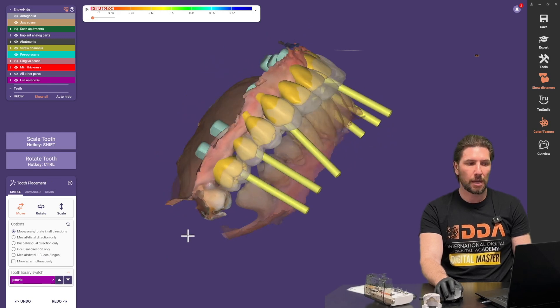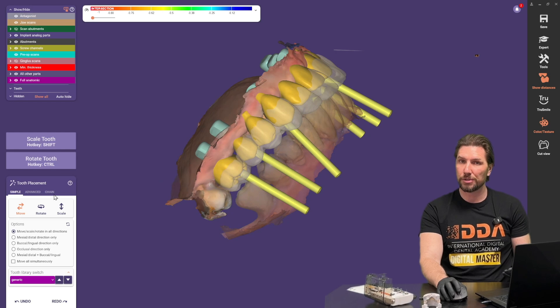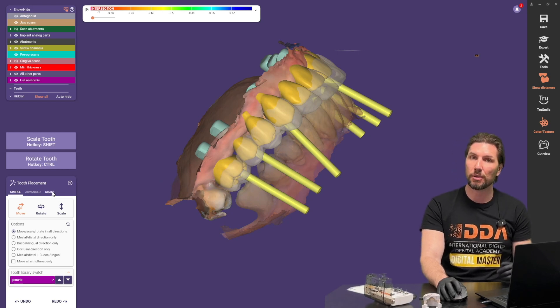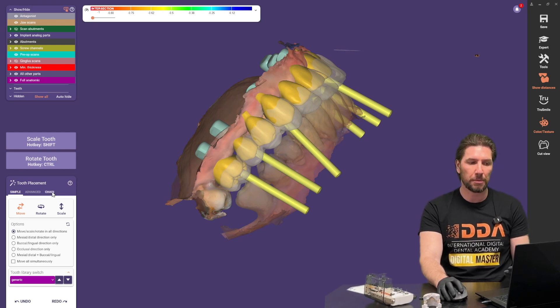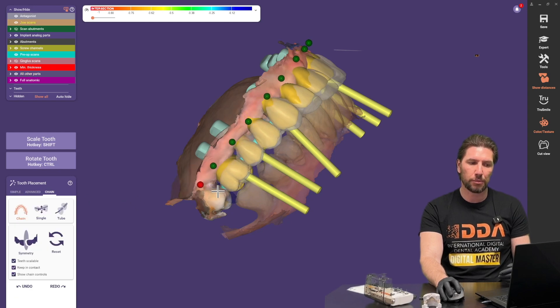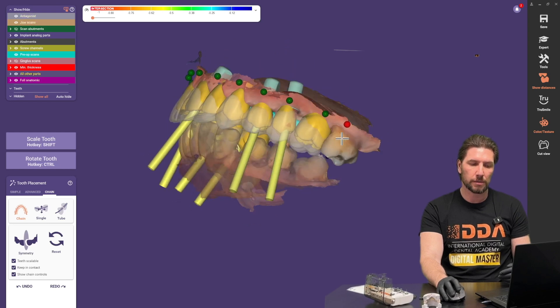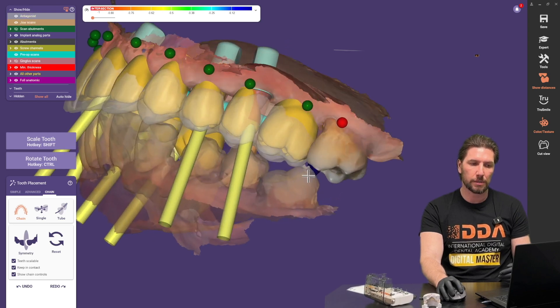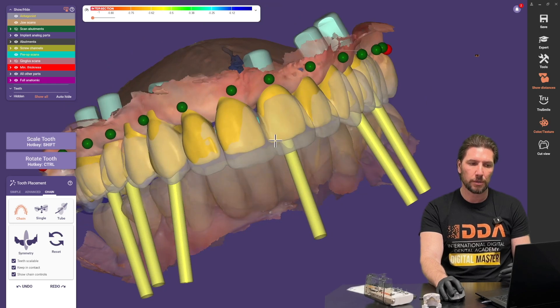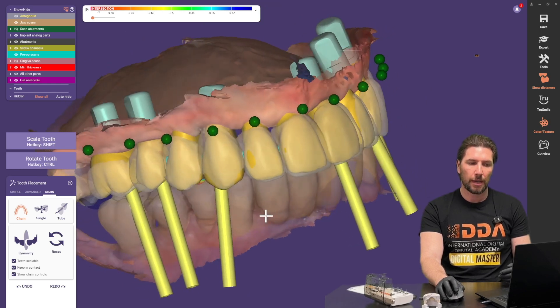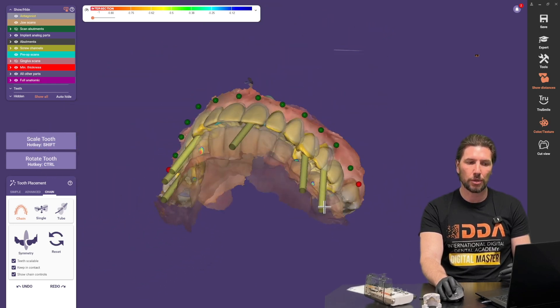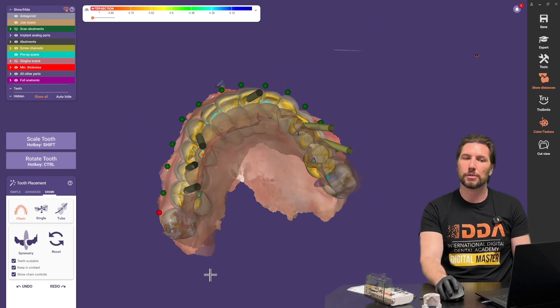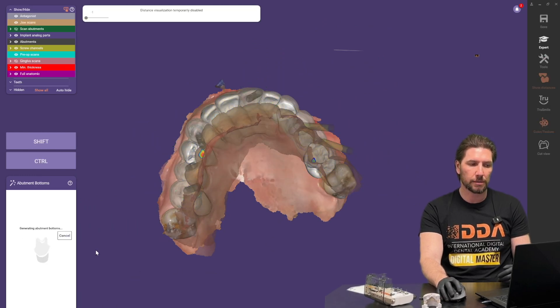The next stage is to position these virtual teeth. Now what we're going to do in this workflow is copy the provisional shape so we don't need to spend too much time on this. It's just roughly putting these teeth into a position that is in line with these teeth that are up there from the provisional. So I'm going to move this down and that's it. We don't need to spend any more time on that because of the next tool we're going to use.